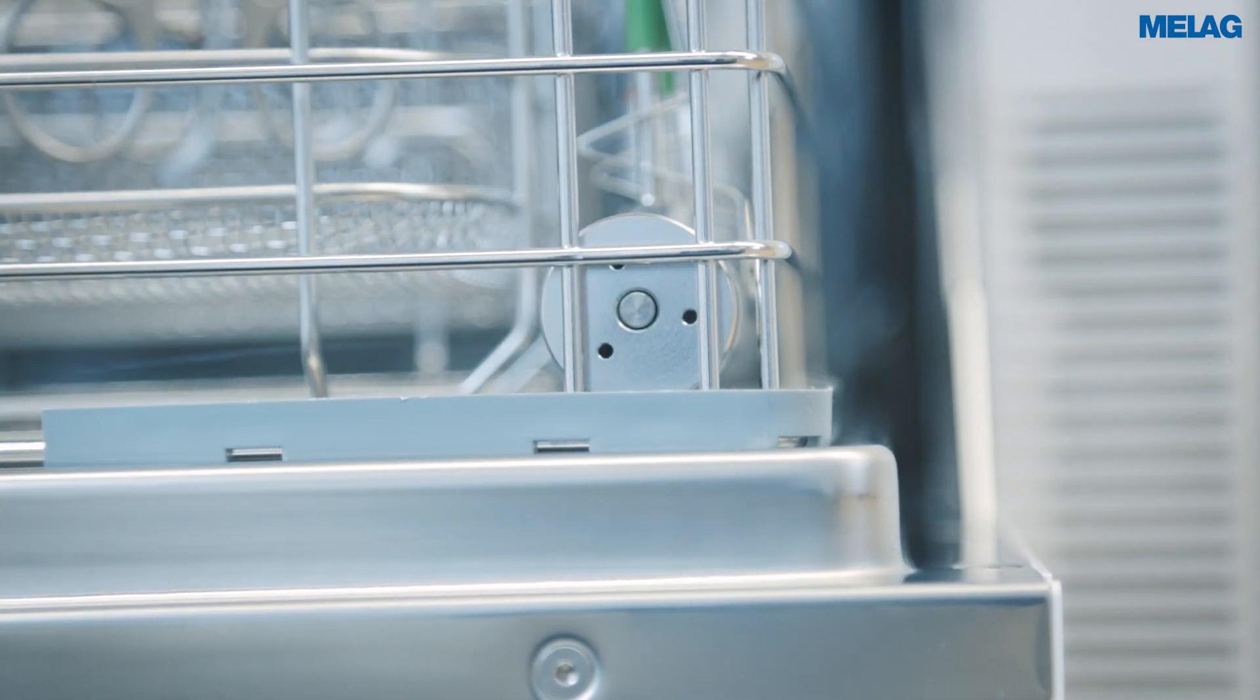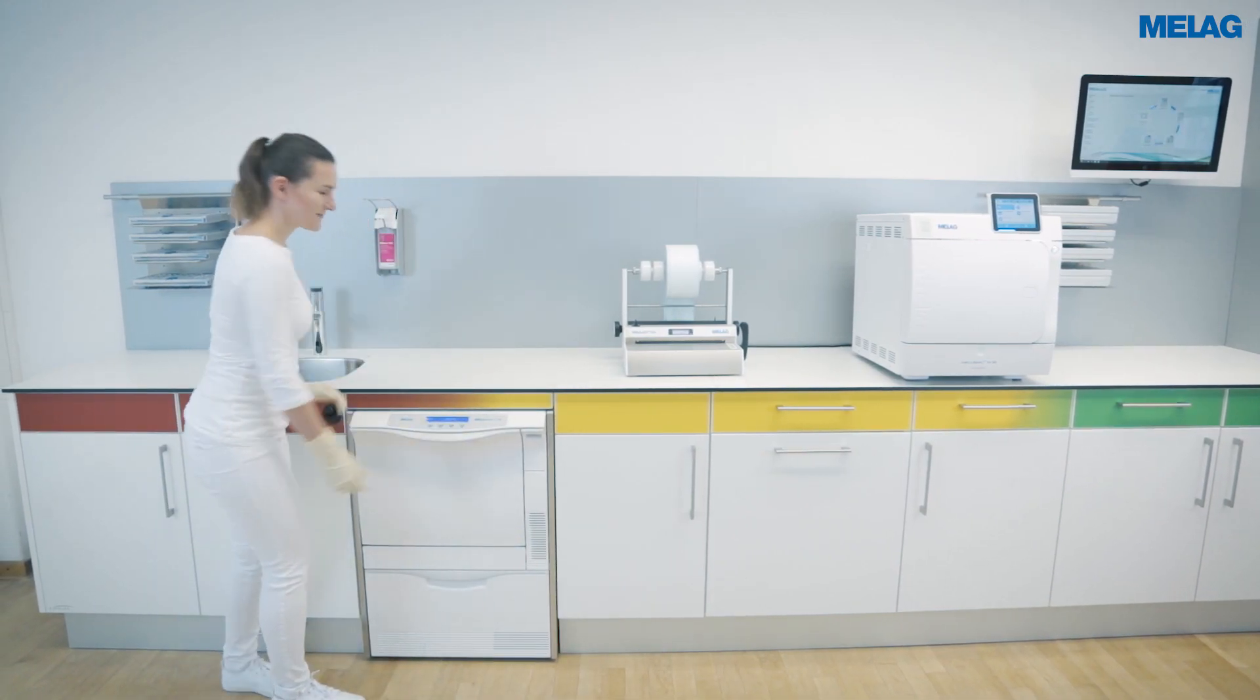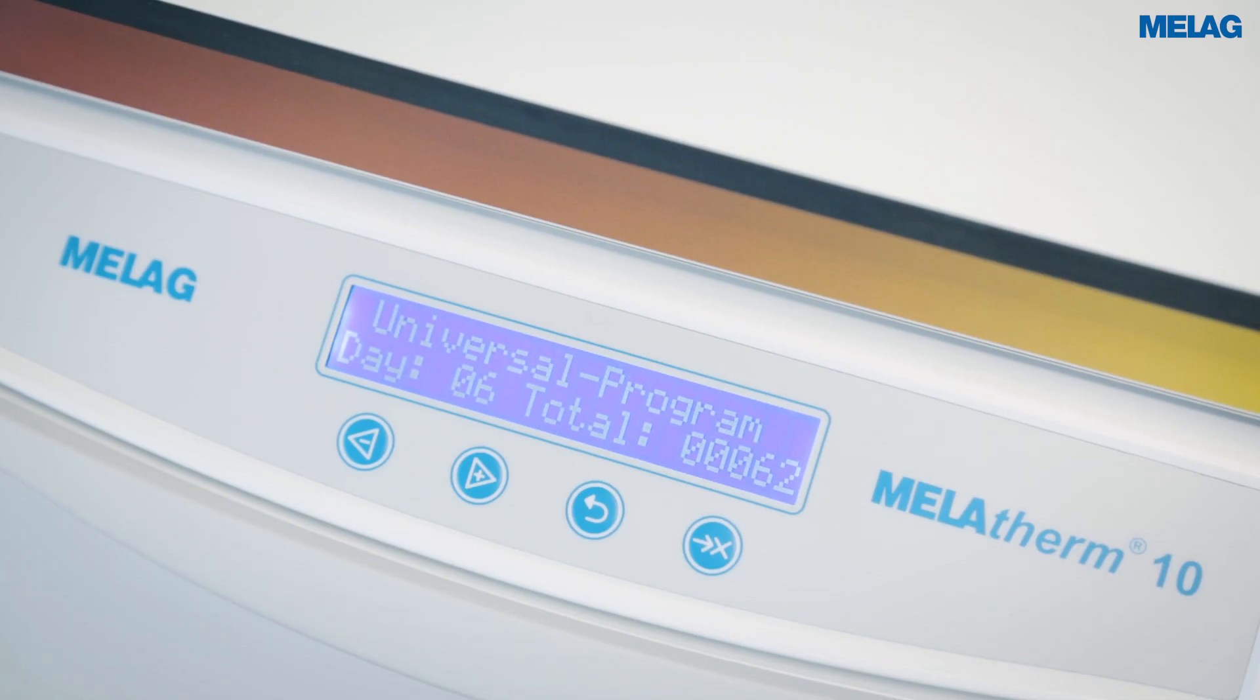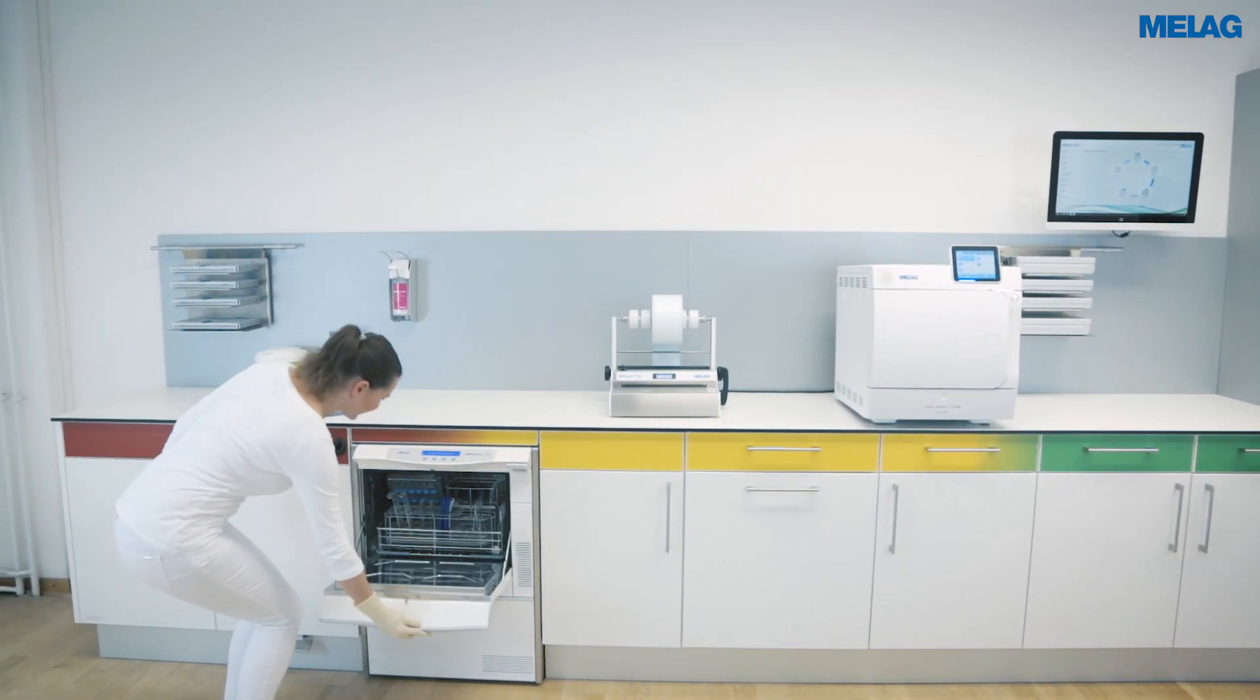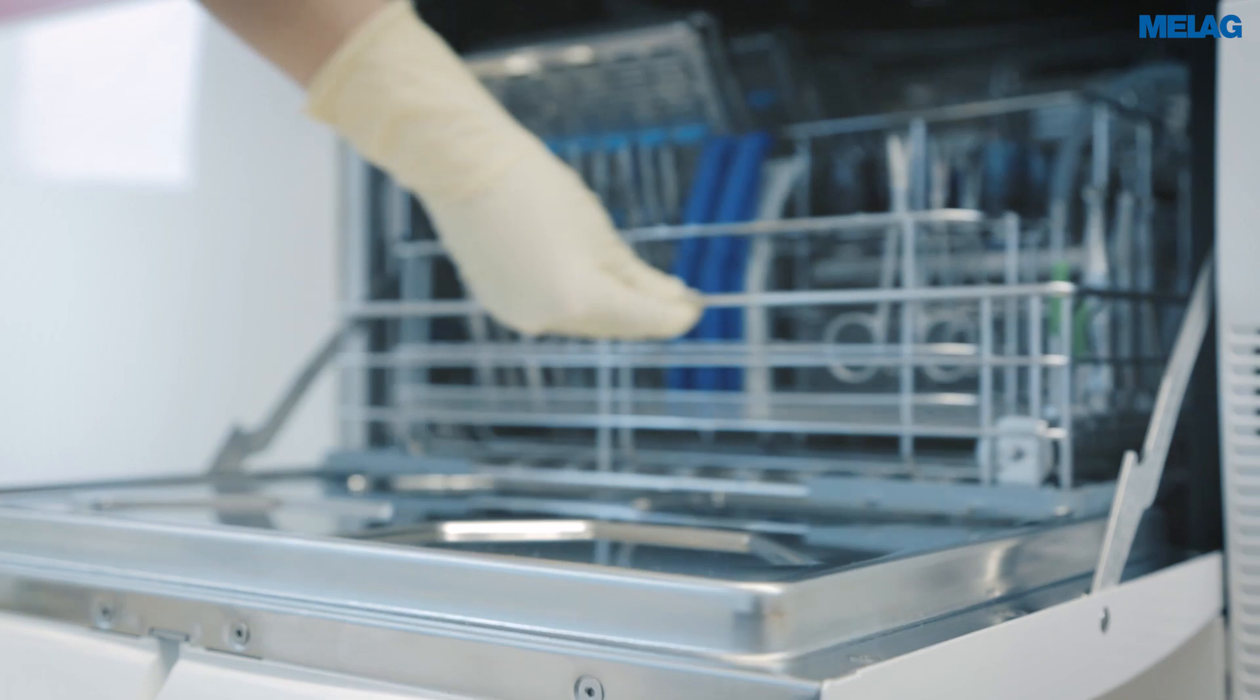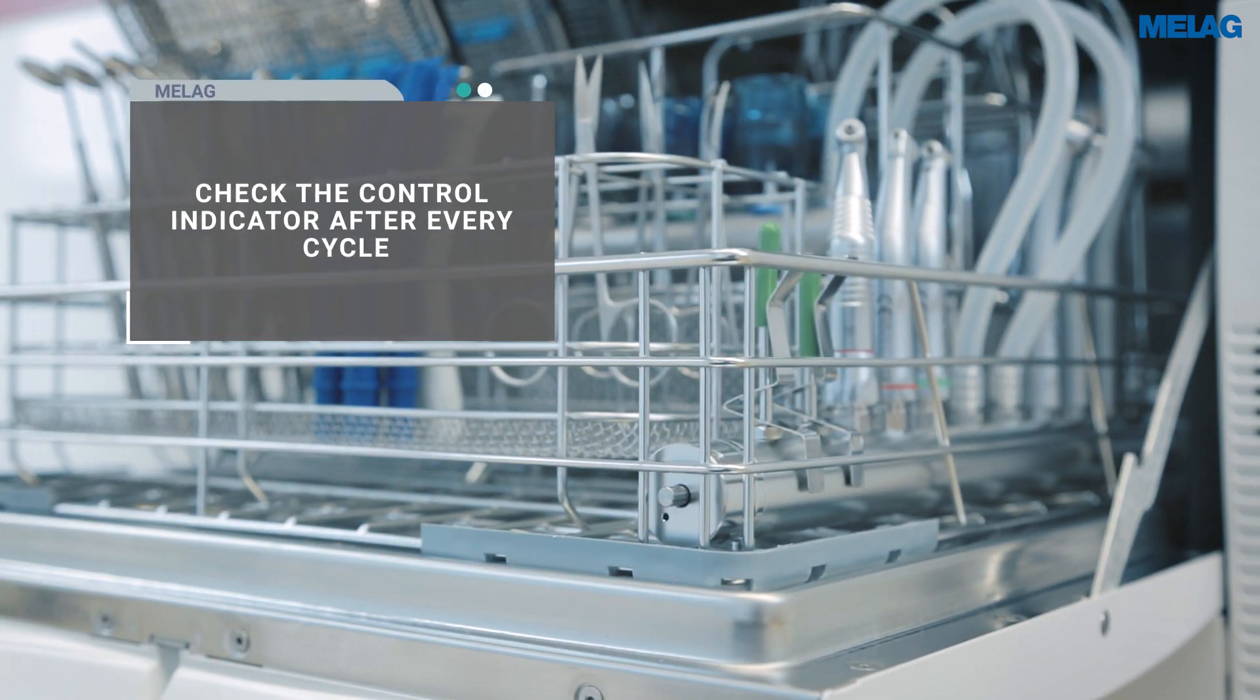Press down the pin of the control indicator before starting a program to check the filter effect. If the pin protrudes after completion of the disinfection program, the central filter can be used further.